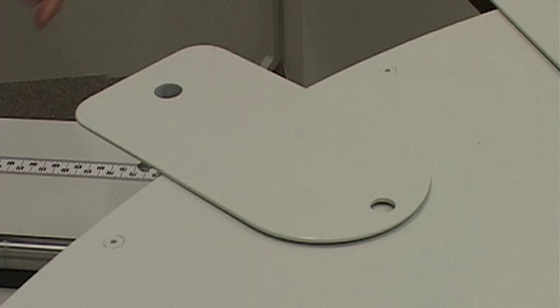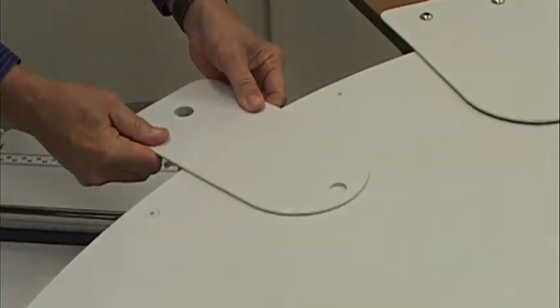The Equus CT also has a dedicated IV pole support that can be placed around the outer perimeter of the carousel for optimum positioning.